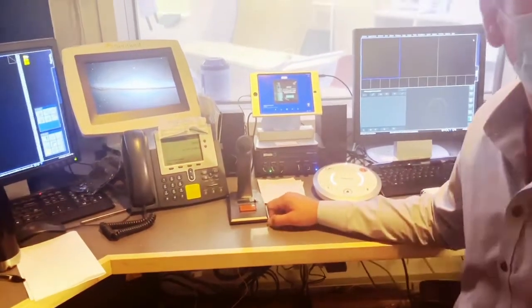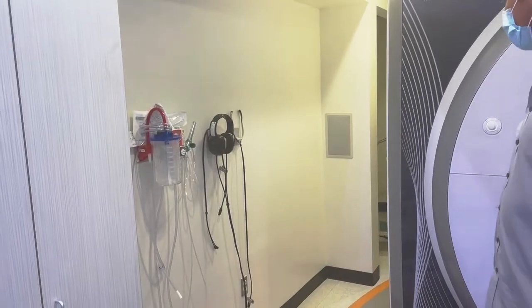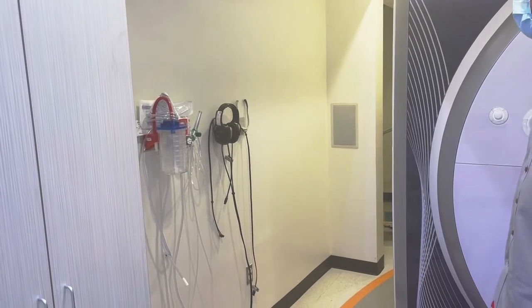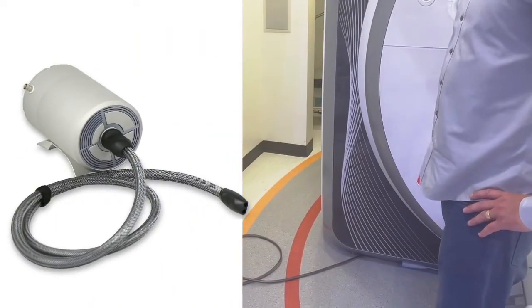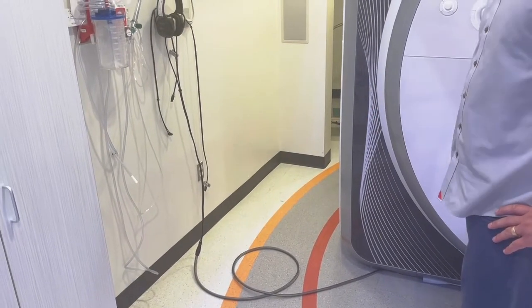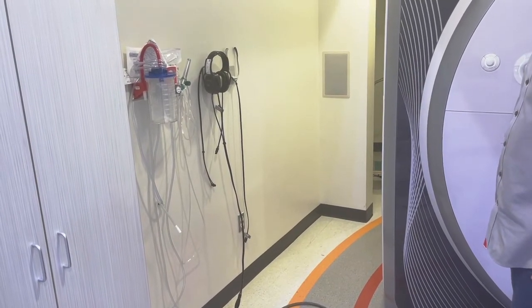Let's go into the MRI suite and I'll show you how the headphones work. Here we are inside suite MR2 at the Yawkey Building. The transducer is concealed underneath the shell of the MRI, so you'll see the gray pneumatic tubing coming out. This can connect to either our over-ear headphones or our in-ear headphones.